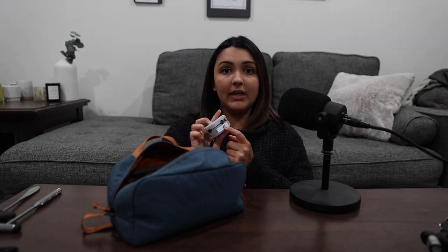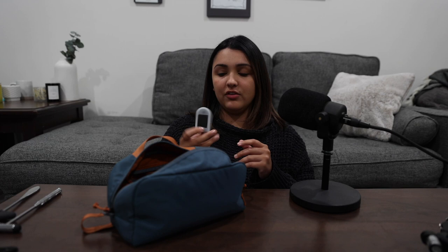Something I bought myself was a pulse oximeter — my school did not provide one of these. I added my initials on the side and I've found it really helpful to have on hand. When I was doing my clinical experiences during the summer, our acute care clinical instructor actually used this quite a bit. I grabbed this on Amazon and most of them are pretty reliable. It's always nice to have, especially if you're mobilizing patients in the hallway — you can't always bring the whole telemetry box with you.